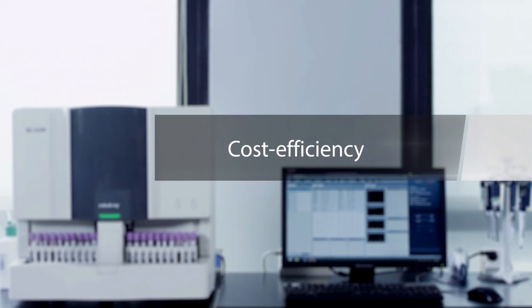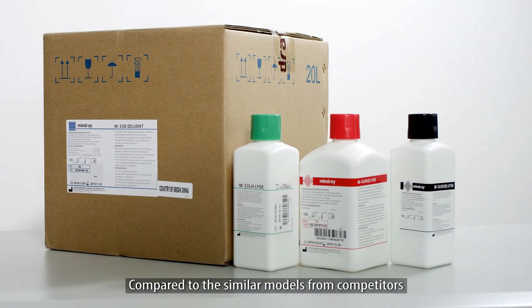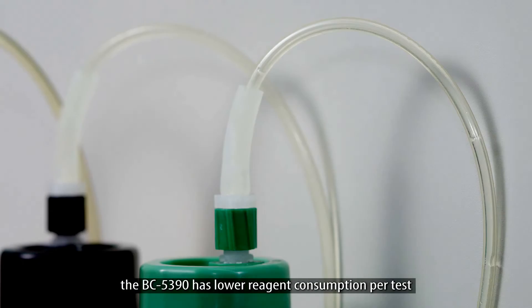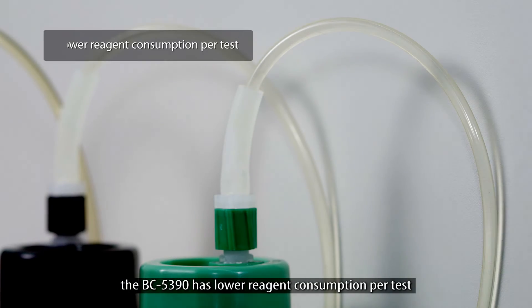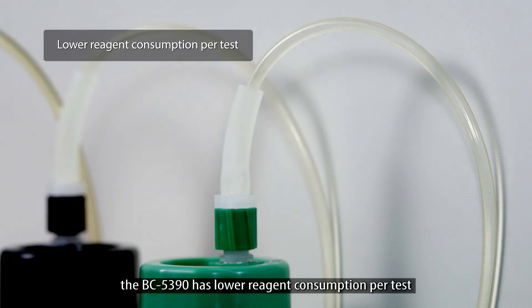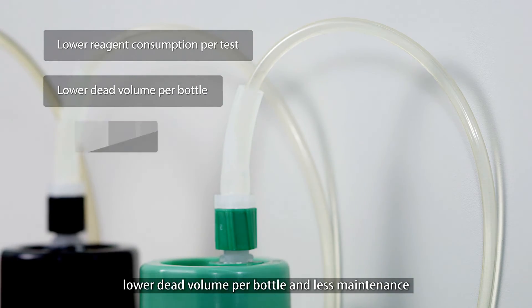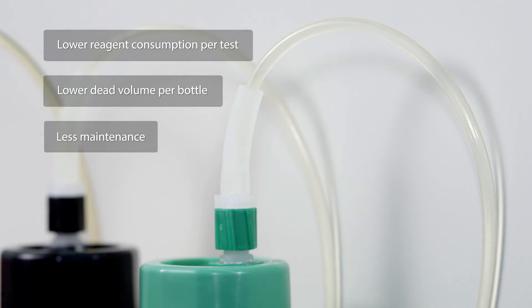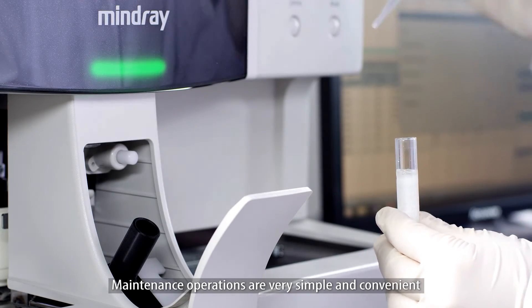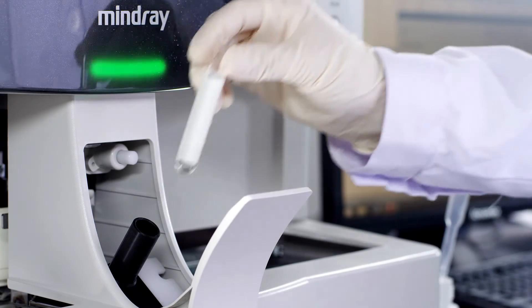Cost efficiency. Compared to similar models from competitors, the BC5390 has lower reagent consumption per test, lower dead volume per bottle, and less maintenance. Maintenance operations are very simple and convenient.